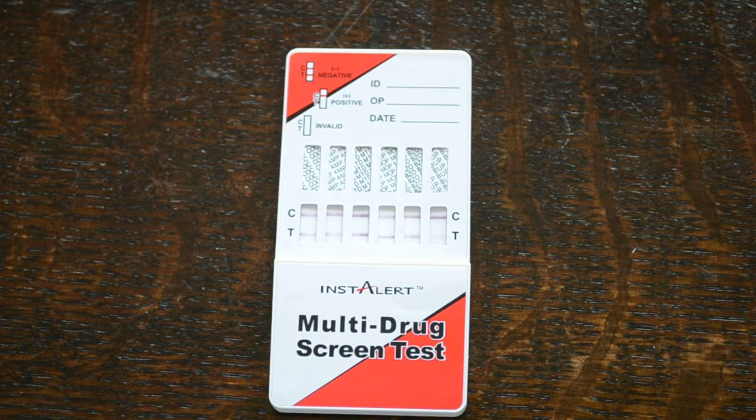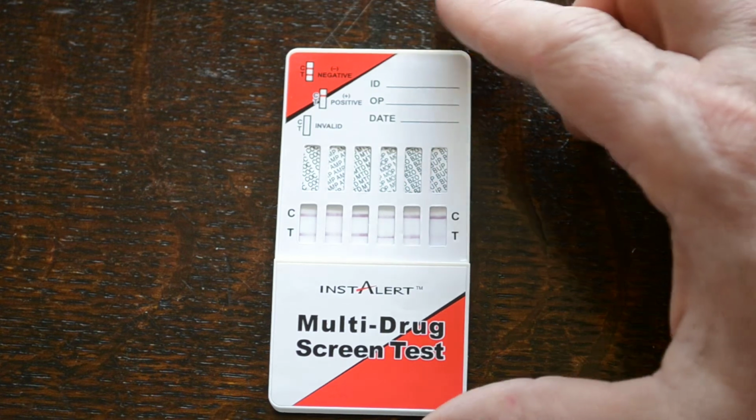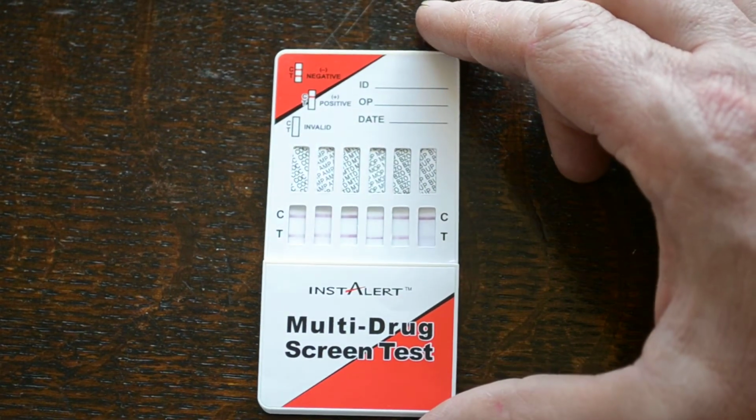You will get variance between these because they're all working at different sensitivities. They're all very accurate tests. You're looking at between 99 and 100% accuracy. For most of these drugs, it's very close to the GCMS tests. All positive tests should be confirmed, having said that, using a GCMS method. But really you can rely on these to exclude all your negative results with a high degree of confidence.